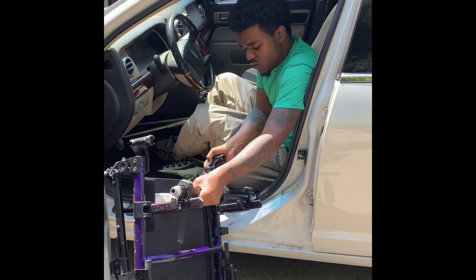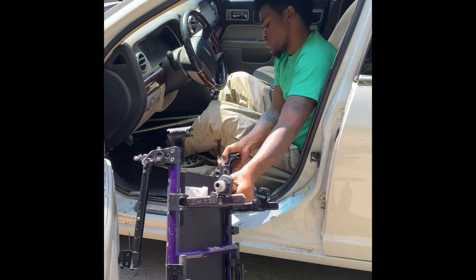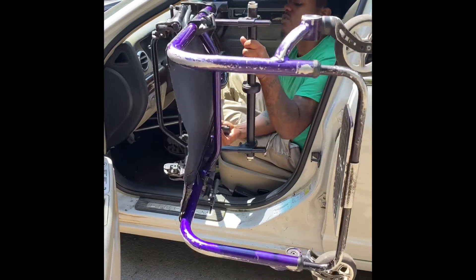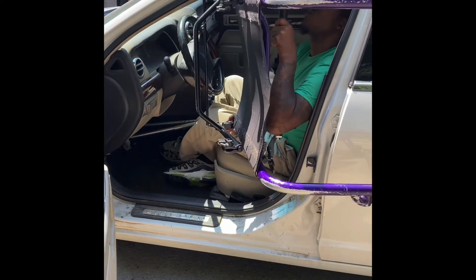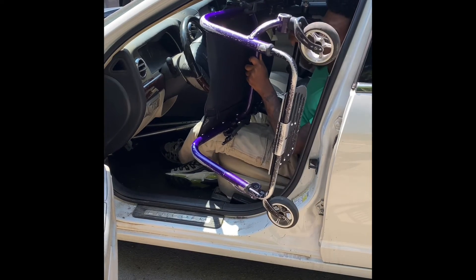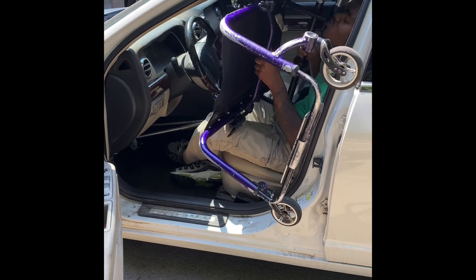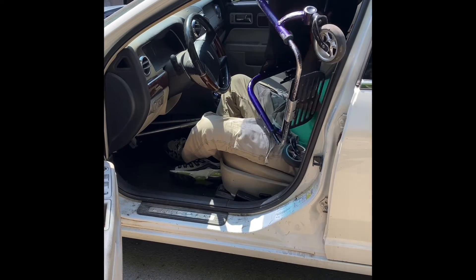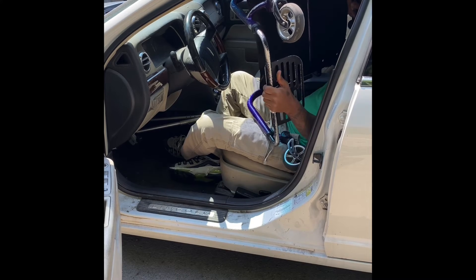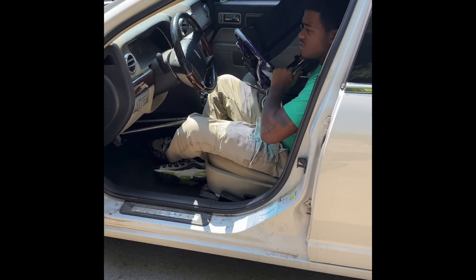So now we're going to lift the chair up with a decent amount of strength, moderate difficulty. I make sure I lift it up like this and not just dragging it all in the car, because I don't want the car getting scratched up nor my chair. Also, you want a clean transfer — you want to keep it pushing. You don't want to be waiting and dropping a chair and getting caught up in difficult situations.